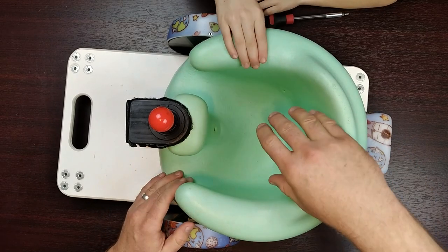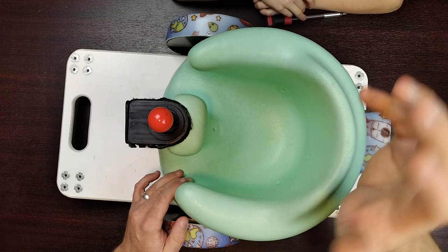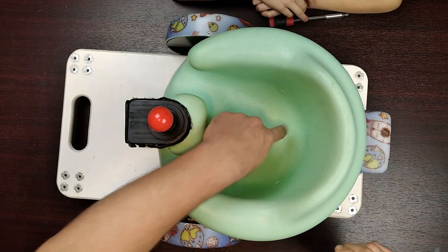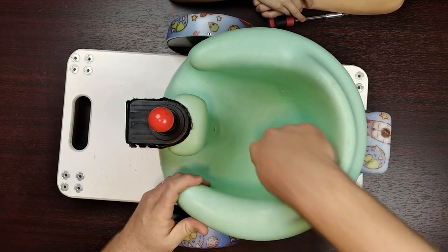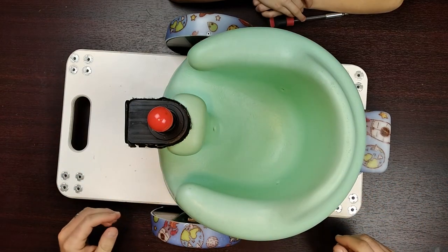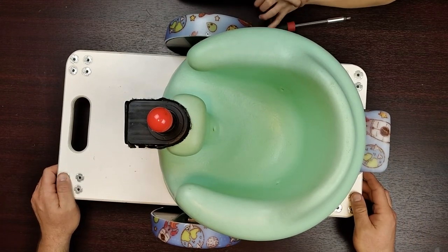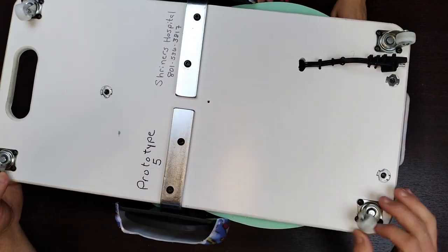Basically babies sit in here when they're little kids and their heads are still a little wobbly but they can still hold them up, but their backs aren't totally strong. You can set your baby in here, and an advantage is if they have a little blowout where it goes up the back of the diaper - right in between the little crevice in the backside - it goes right up and it collects it neatly right back in here, and you throw the whole thing in the wash because they're nasty anyway.